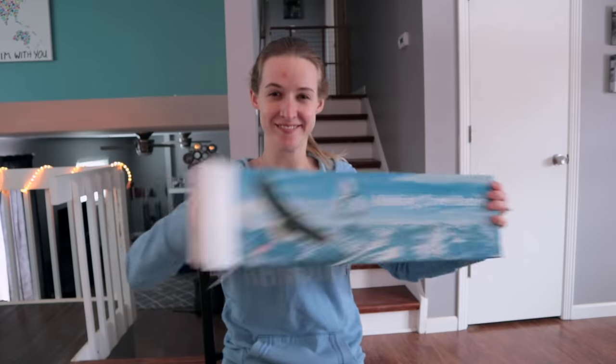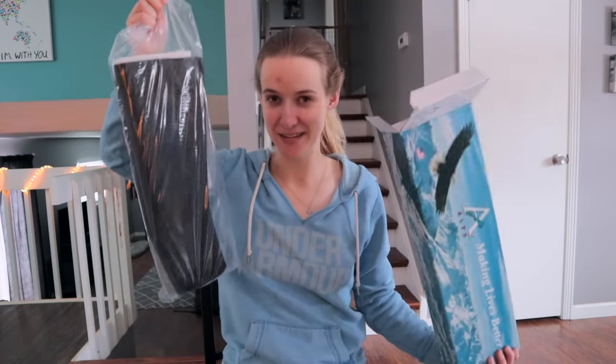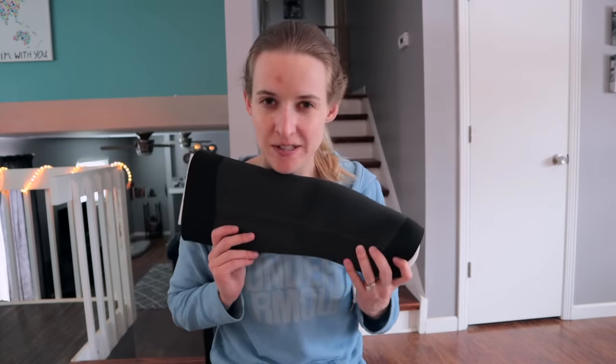This problem has been solved for a couple of weeks — this is the first time it's not suctioned to me properly in a little while. But if my fix hadn't worked, the next step was going to be to replace my sleeve itself, which I just got in the mail. That might not seem like a big deal, but you have to stretch it over a hard carbon fiber — or in my case basalt — socket. With most insurance companies you can only get replacement parts for your leg every six months, so if I needed extra sleeves or liners before that I'd have to pay out of pocket.